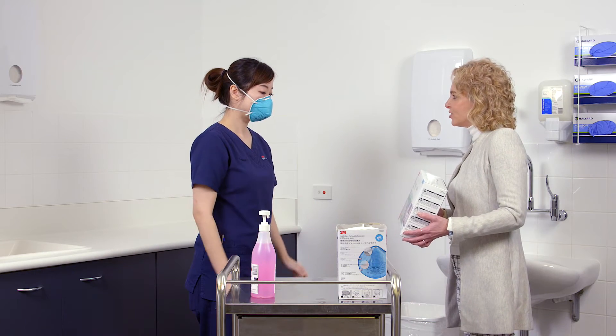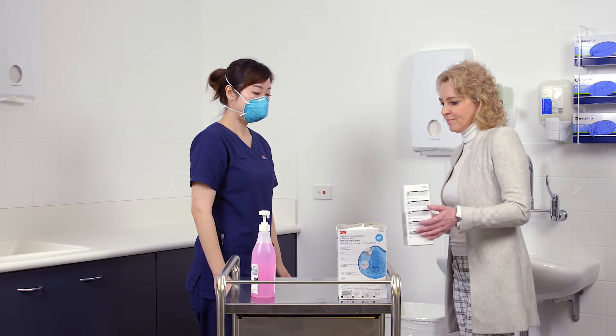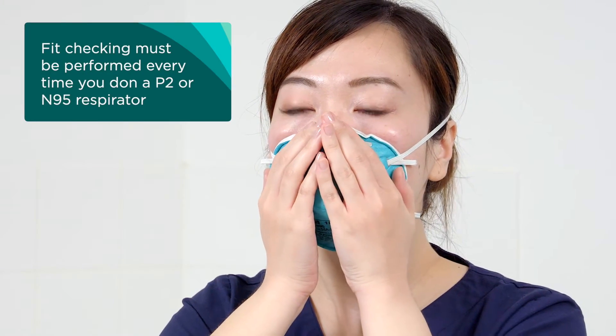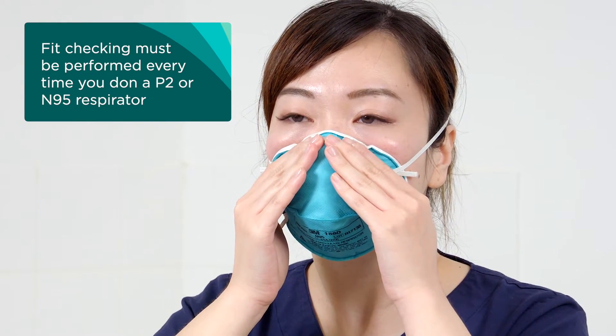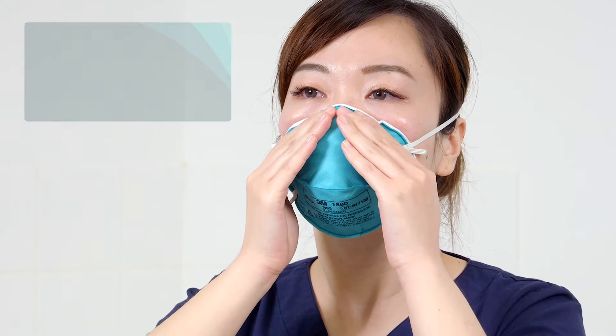Speak to your educator or manager if you cannot achieve a good facial seal after addressing these possible reasons. An alternative style or size of respirator may need to be sourced and tried. Remember, fit checking must be performed every time you don a P2 or N95 respirator.